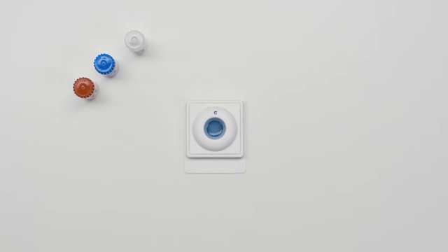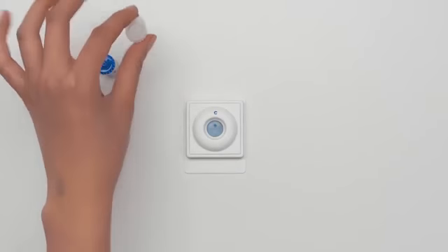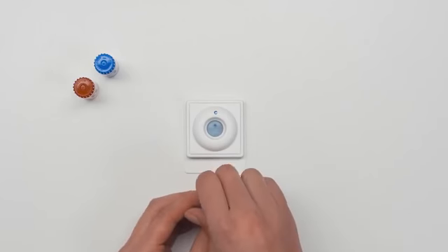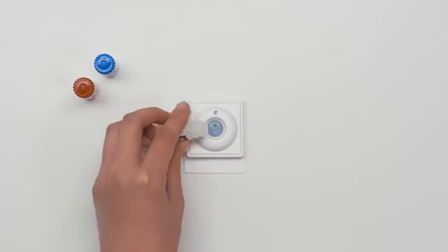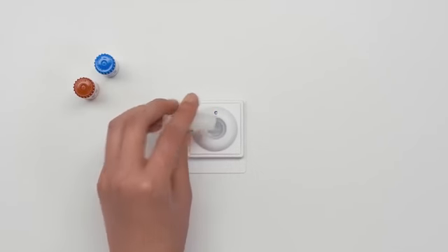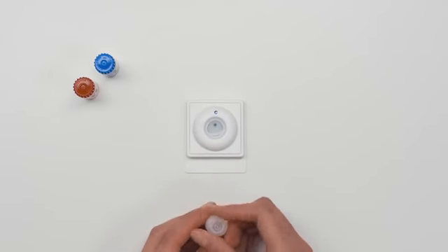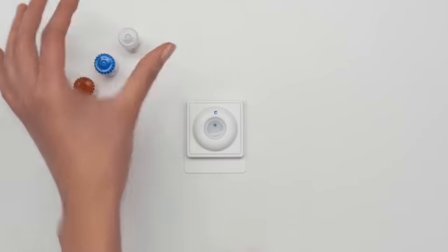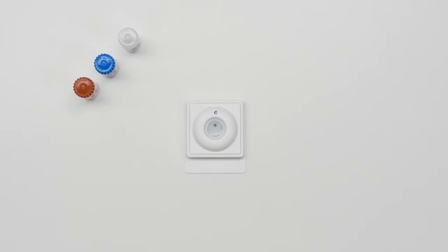Wait until the liquid disappears. Bottle three. Shake bottle four times and pour all of the liquid into the test device. Wait until the liquid disappears.